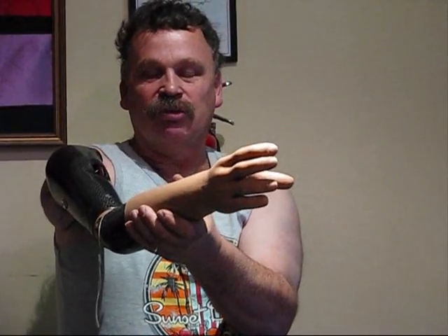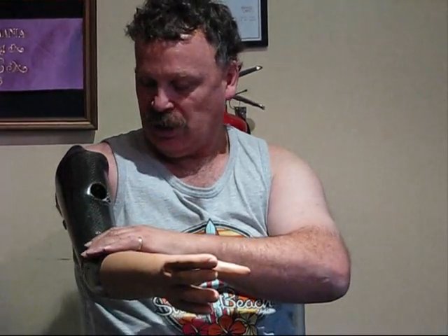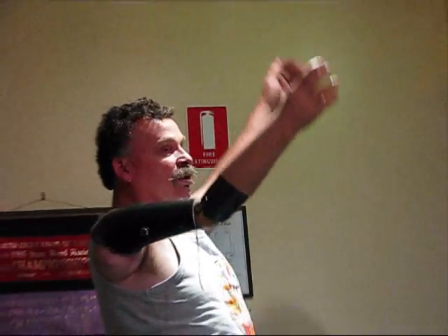The prosthesis itself is carbon fiber and the hand is a sensor speed hand. It's controlled by a belt along my tummy because all my bicep muscles — or normally my electric signals — are gone. I'm too short an amputee. But the beauty about it is I've got nearly my full range of motion, and that's tremendous. You can see just how high I can go — as high as my other hand. I haven't lost any range of motion, and due to osseointegration I have now got my shoulder back, thanks to Rickard Brunemark and his team in Sweden. I'll never be able to thank them enough. Thank you.